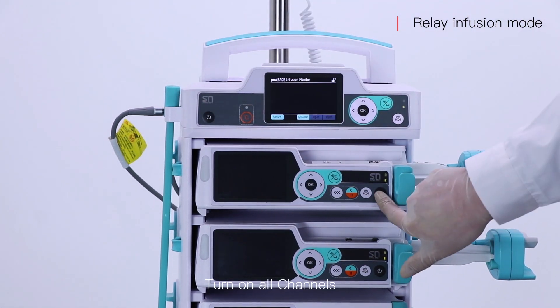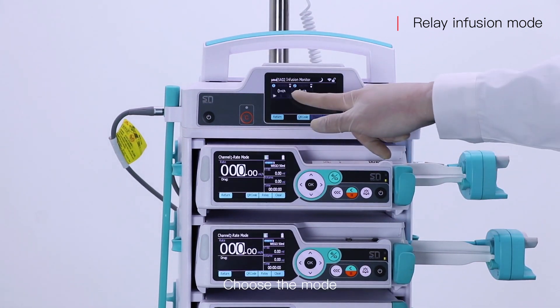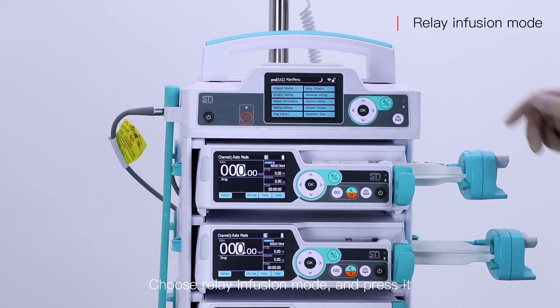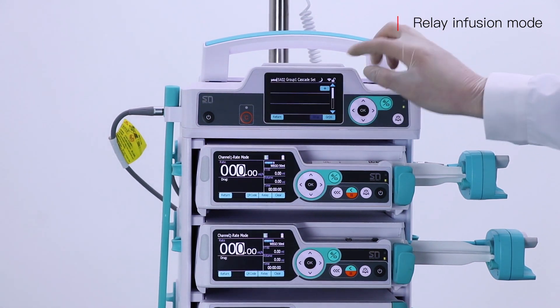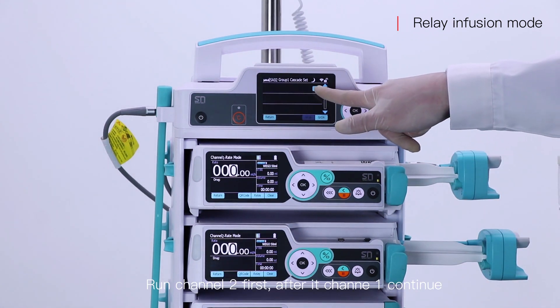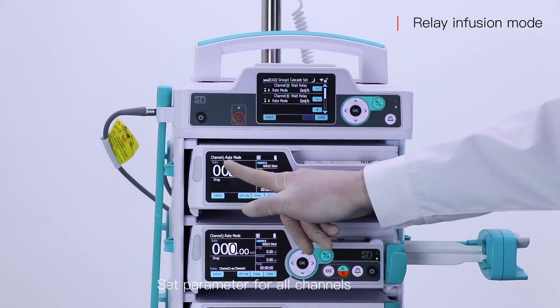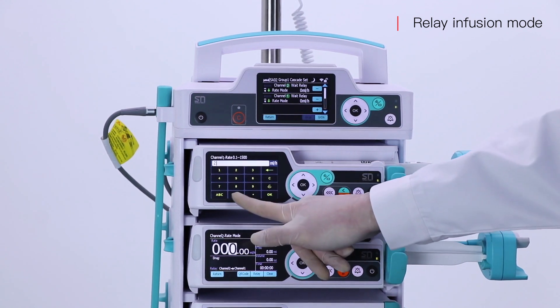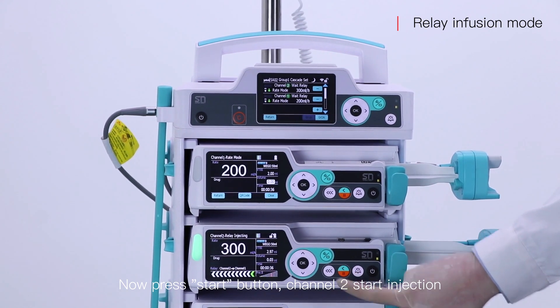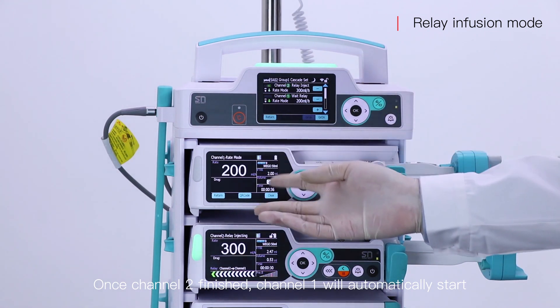Turn on all channels. Choose the mode — choose relay infusion mode and press it. Set the sequence of the channels: run channel 2 first, after it channel 1 continues. Set parameters for all channels, then press the start button. Channel 2 starts injection. Once channel 2 finishes, channel 1 will automatically start.